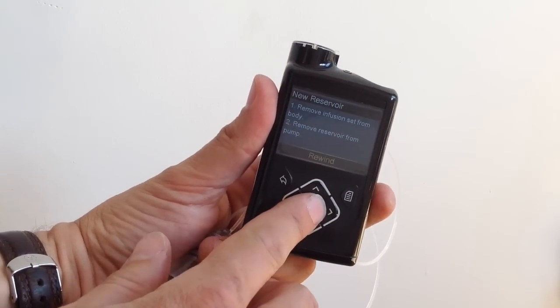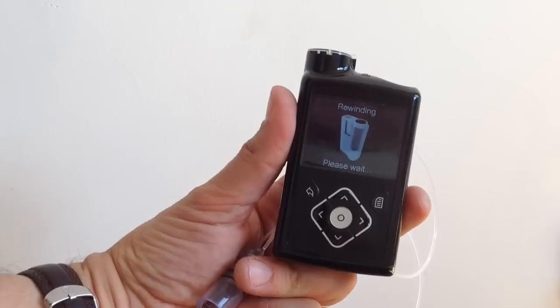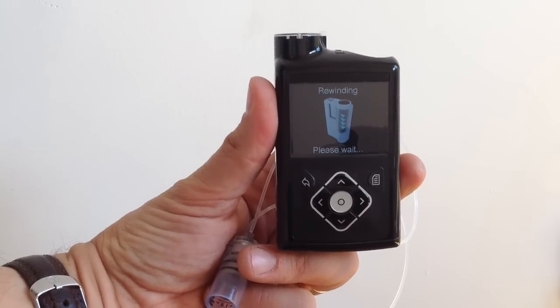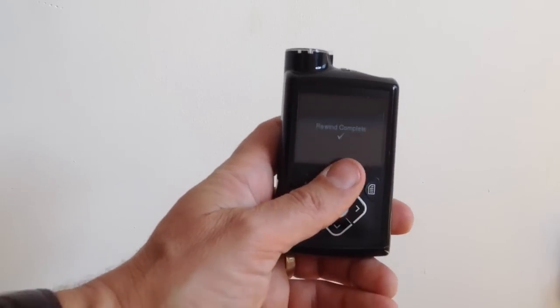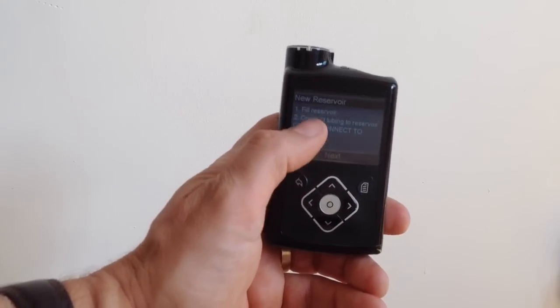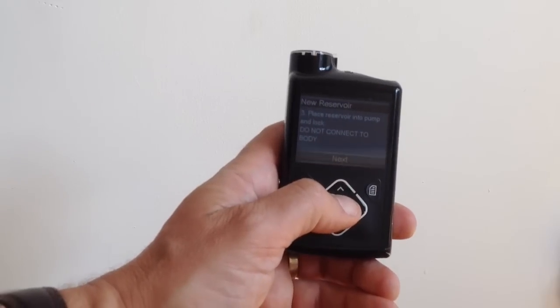And then you press the centre button to rewind. And then you get a little funky rewinding graphic. There you go. Rewind is complete. And then fill the reservoir, which I've now done. Next.